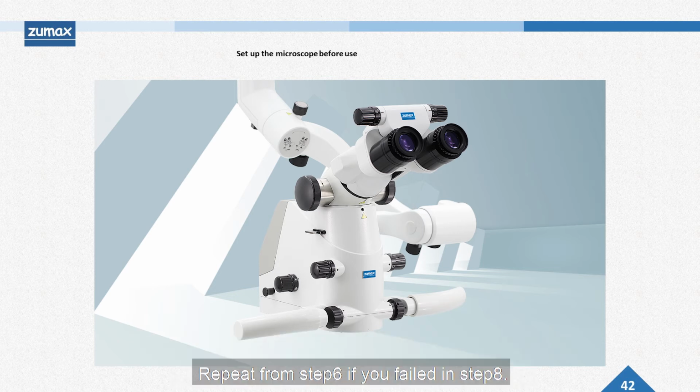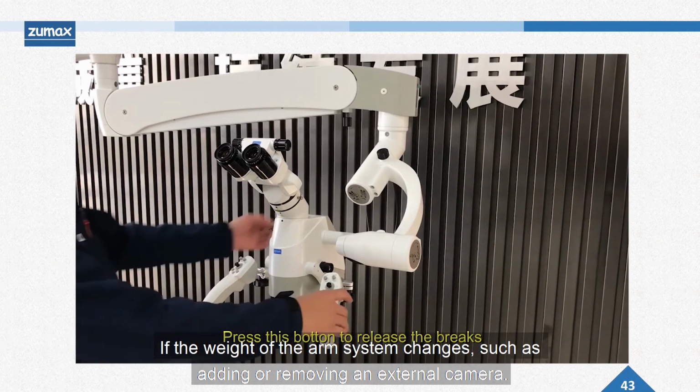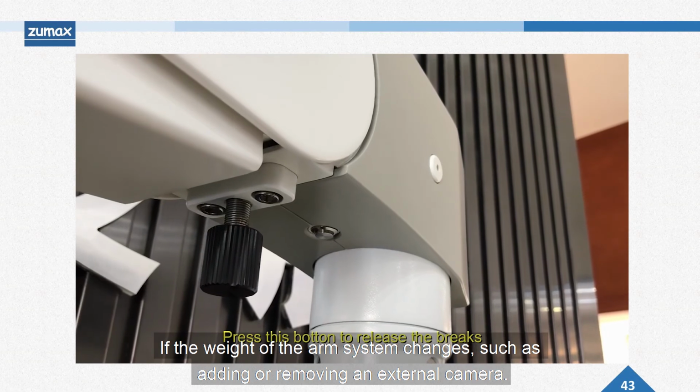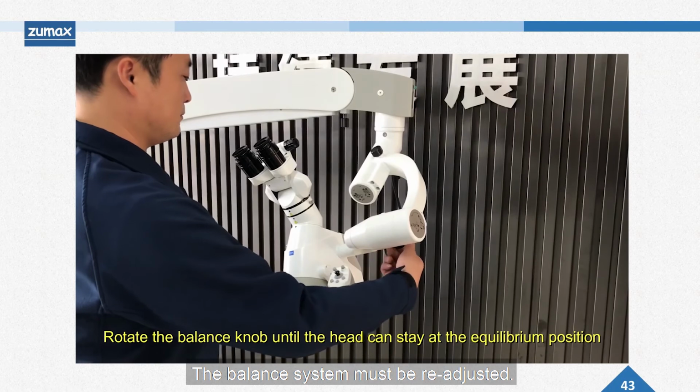Repeat from step 6 if you failed in step 8. If the weight of the arm system changes, such as adding or removing an external camera, the balance system must be readjusted.